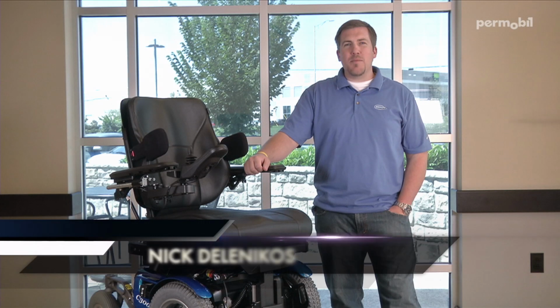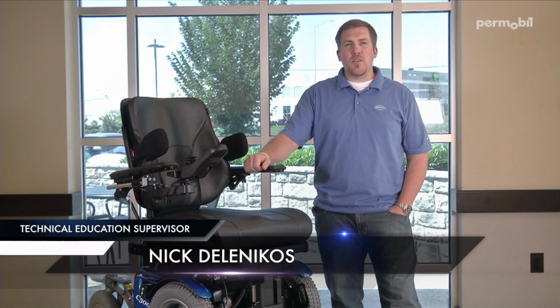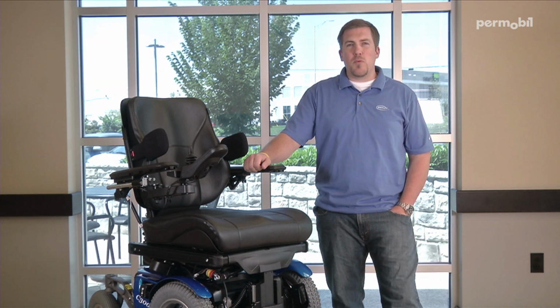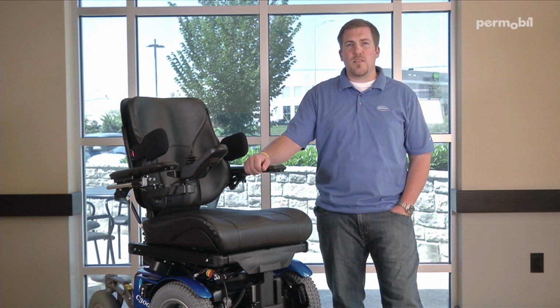Hi, my name is Nick and I'm going to outline the features of Permobil's memory function. Memory is a feature that's built into all Permobil wheelchairs with RNet and ICS electronics. It allows you the ability to save 3 different positions into the wheelchair's brain of the seating system.